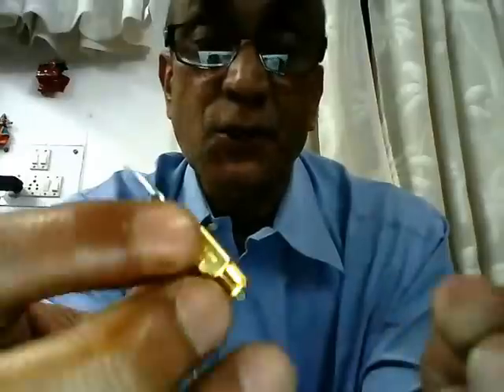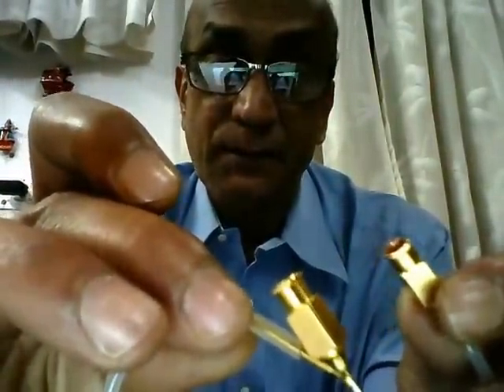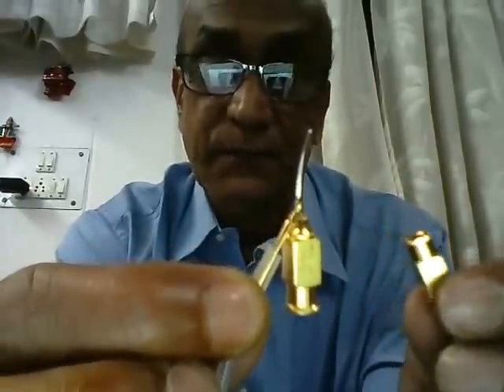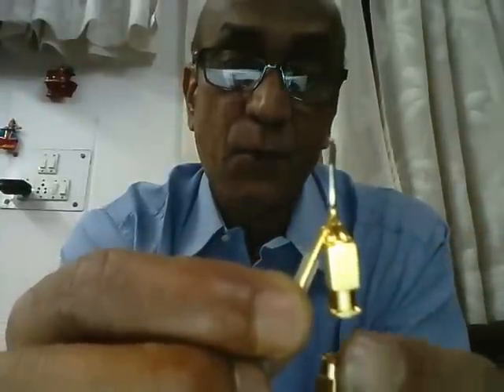The anterior port is always meant for suction or aspiration from the anterior chamber, and the side port is always meant for irrigating the anterior chamber. Now, the question is which of the two hubs is used for aspiration and which for irrigation. There is something called a direct Simcoe and a reverse Simcoe. In the direct Simcoe, the metallic luer hub is meant for irrigation.